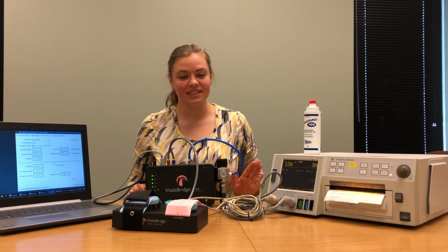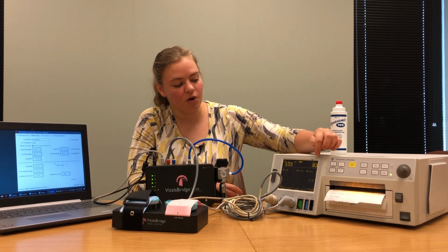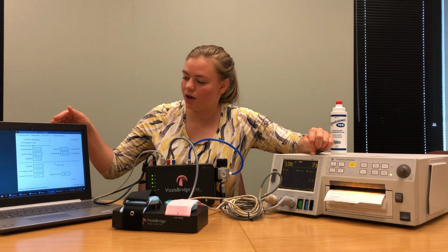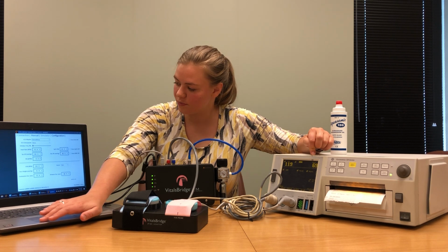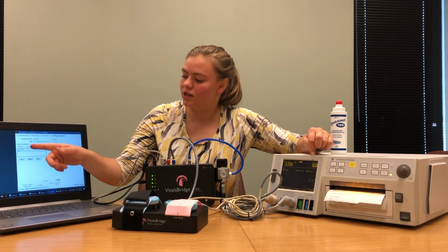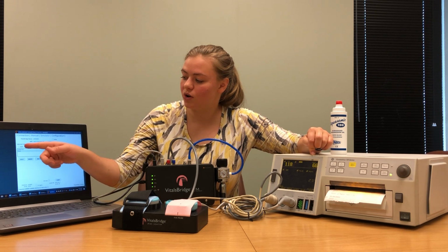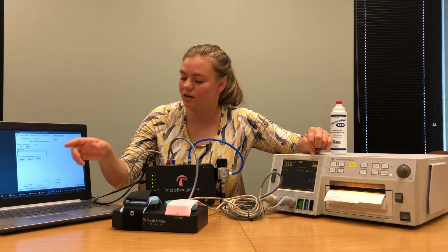All right, the next thing that we need to do is calibrate our TOCO signal. You'll notice how the TOCO number is not what we might expect for a TOCO reading. So we'll come here to the configuration tab of our VitalsBridge connector software, and we'll navigate to the little button that says TOCO. When we select the button that says TOCO, any calibrations that we've previously performed will appear in this black box.